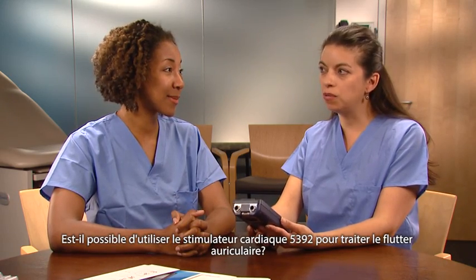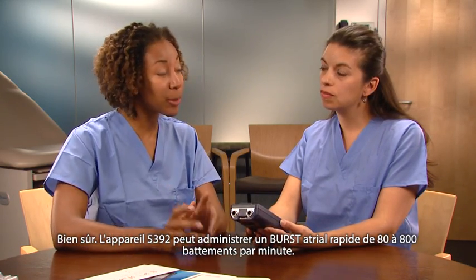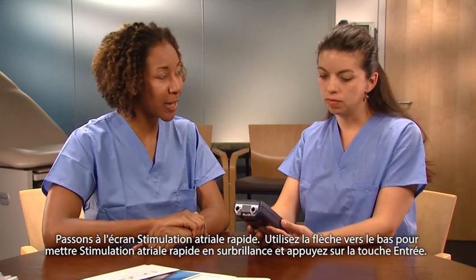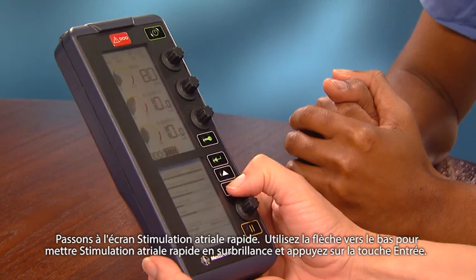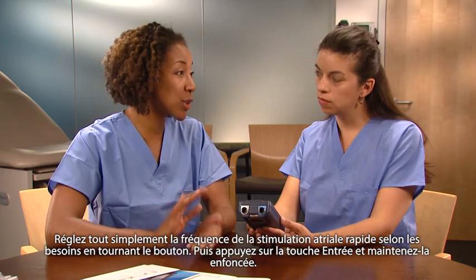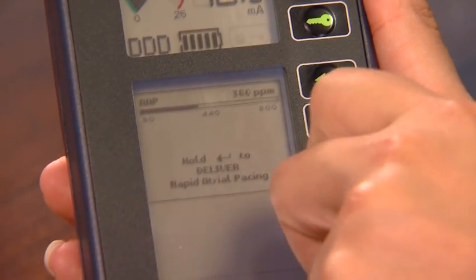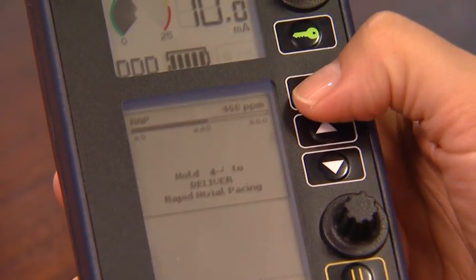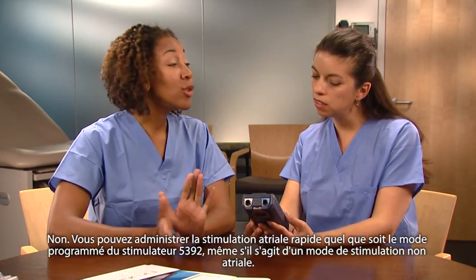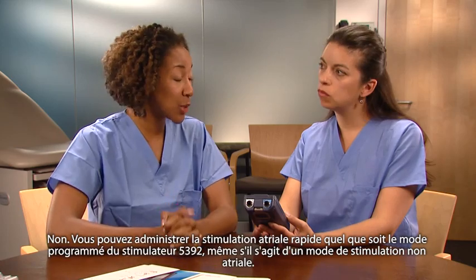Yes. Is there any way to use the 5392 to treat episodes of atrial flutter? Of course. The 5392 can deliver a burst of rapid atrial pacing anywhere from 80 to 800 beats per minute. Let's go to the rapid atrial pacing screen. Use the down arrow to highlight rapid atrial pacing and press the Enter key. Just set the rapid atrial pacing rate as needed by turning the dial and then press and hold the Enter key. You can deliver rapid atrial pacing no matter what mode the 5392 is programmed to, even if it is a non-atrial pacing mode.